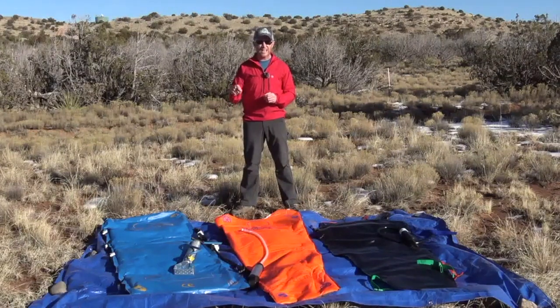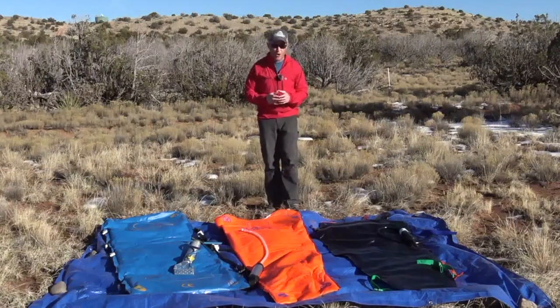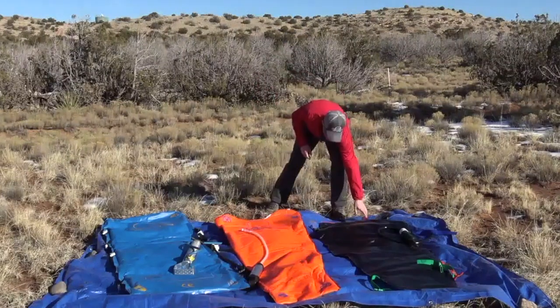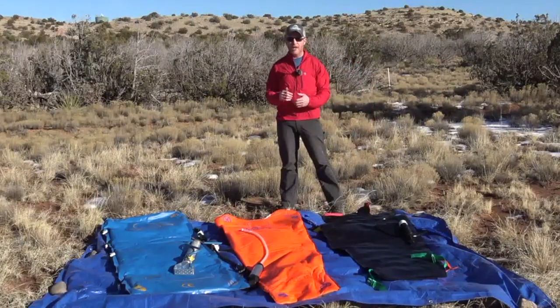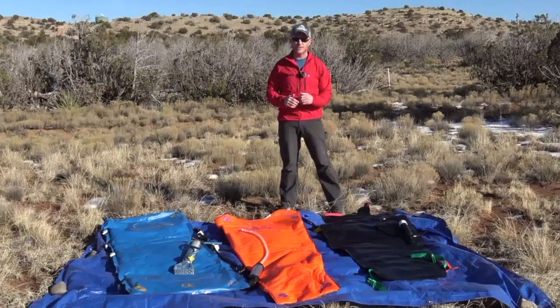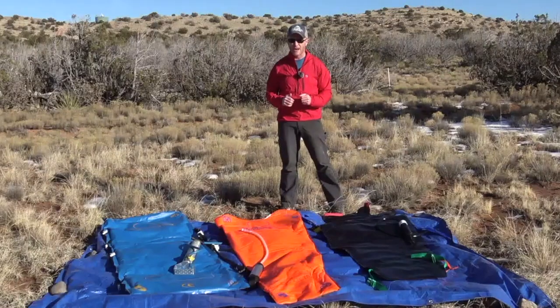The technology has gotten lighter over the years for both the mattresses as well as the pumps, and we're also seeing an increase in durability. What we're currently using in southwest Colorado and having really good results with are these lightweight mattresses made by Medtech. As you'll see later in this video, this is a really lightweight, versatile piece of equipment that's very easy to use and provides a lot of advantages in backcountry rescue.